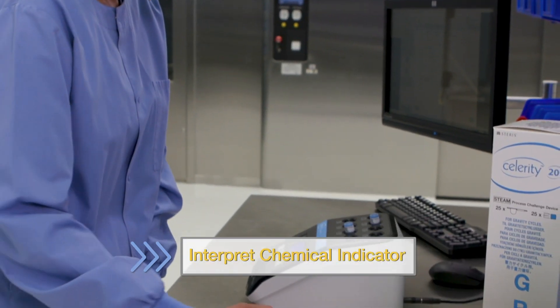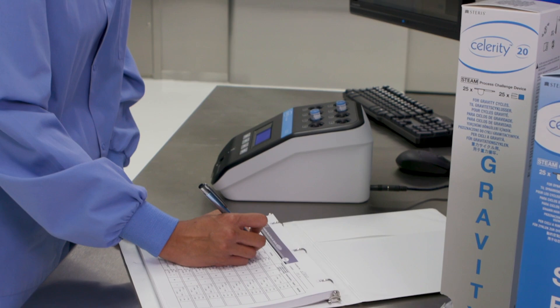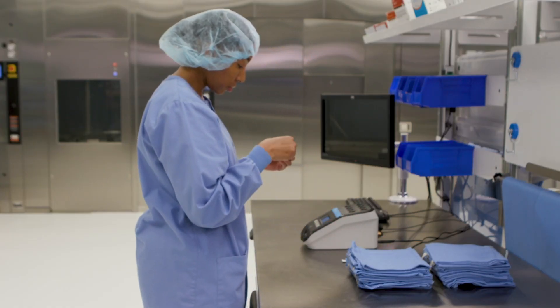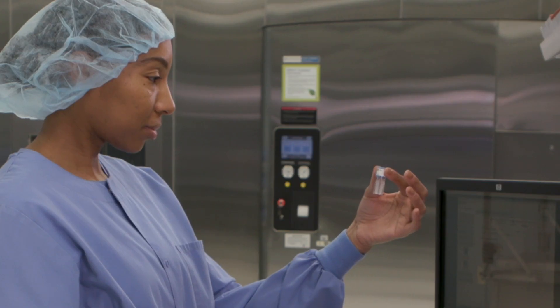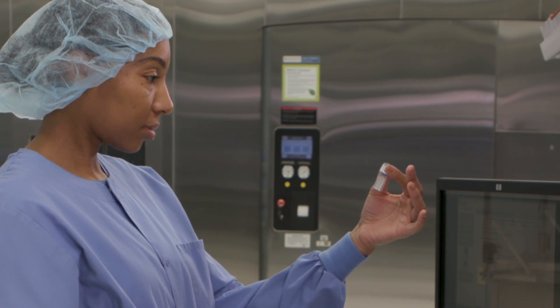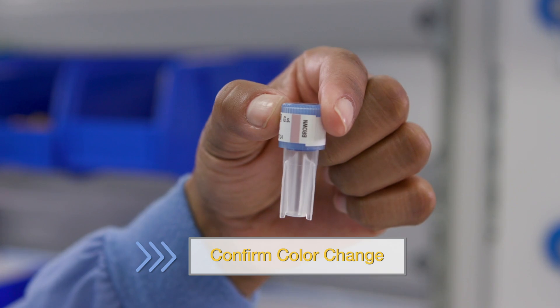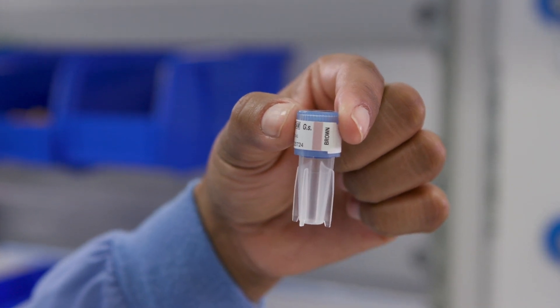Interpret the chemical indicator per the manufacturer's instructions and document the result. Next, observe the BI. Confirm no media is present in the vial. Check the process indicator on the BI cap to confirm the color change from pink to brown, indicating exposure to steam.